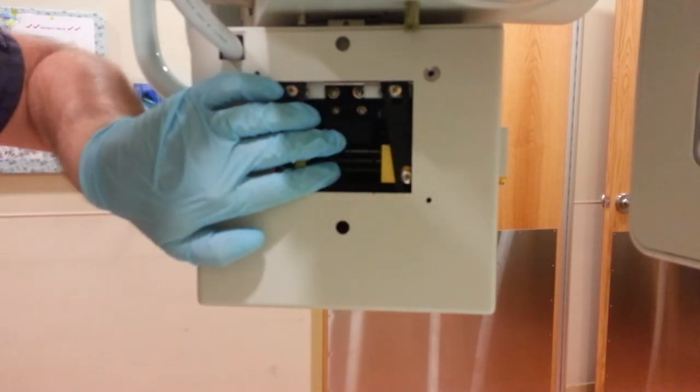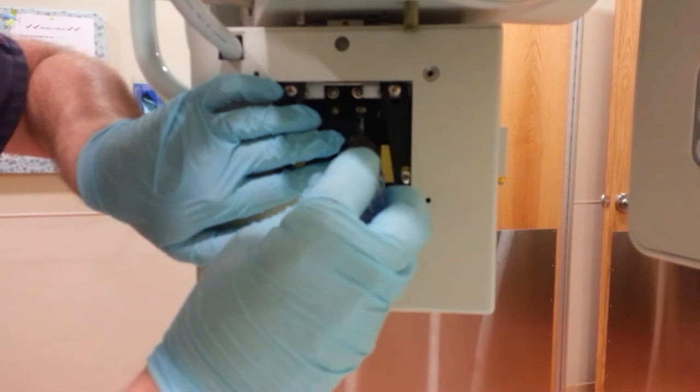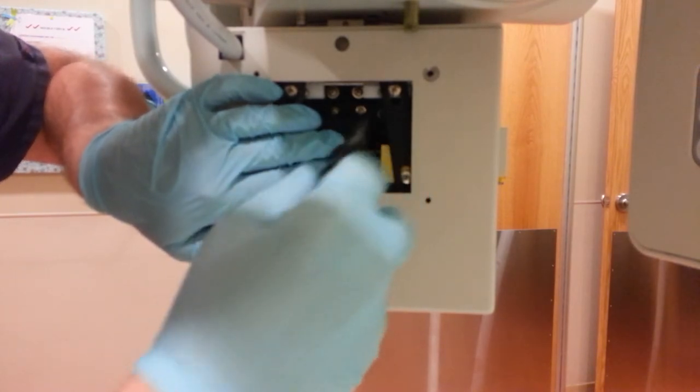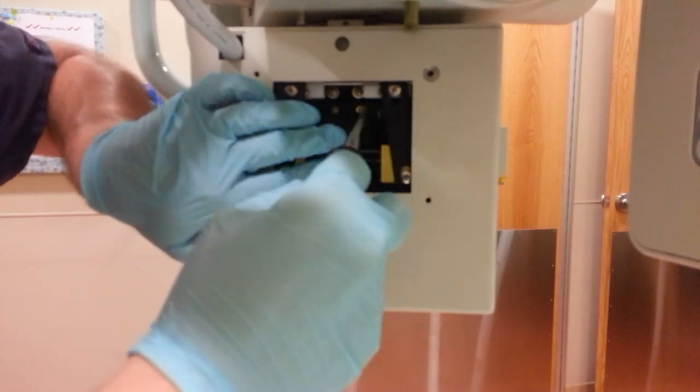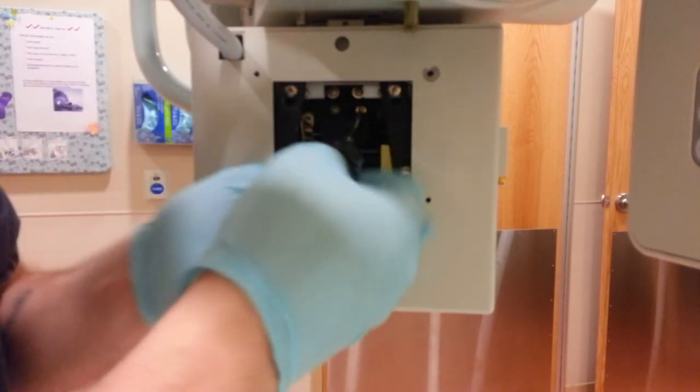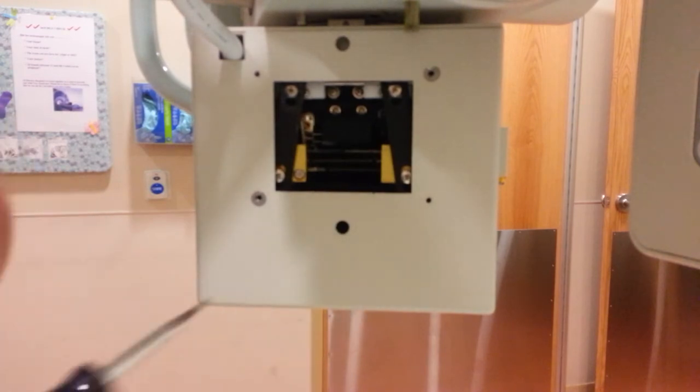Just kind of hold that in place while we screw the screws back down. There we go.